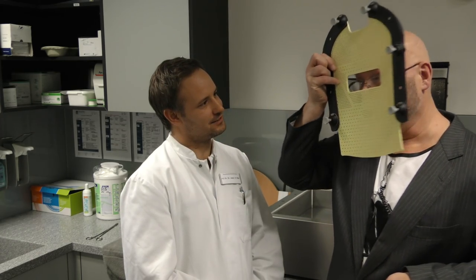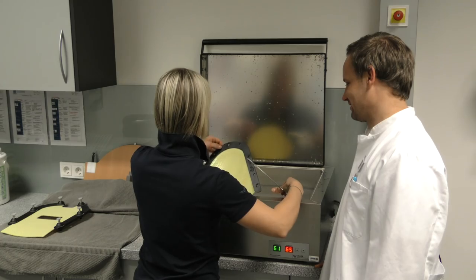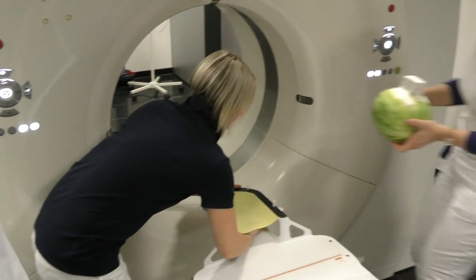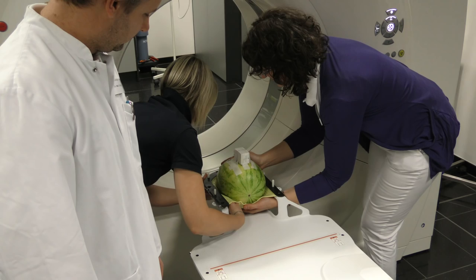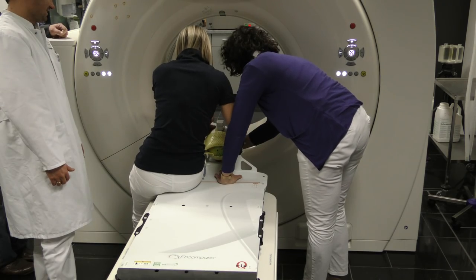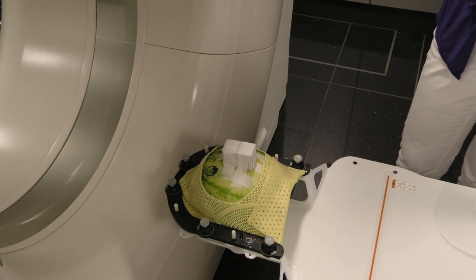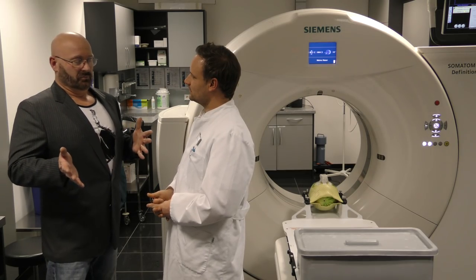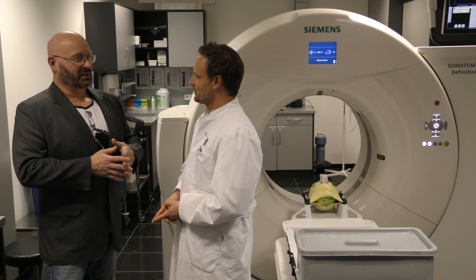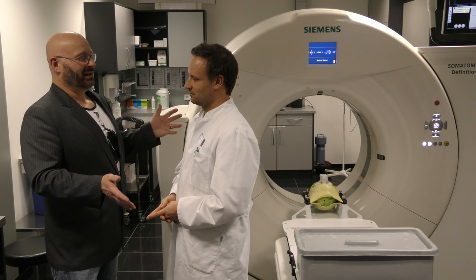This looks a little bit like a ski mask now. So in the beginning of a bombardment — an attack — you first need to define your target. This machine is pretty much your telescopic sight, or your target measurement system.